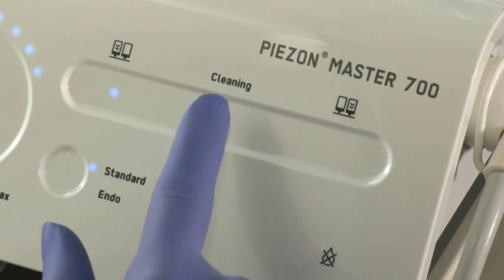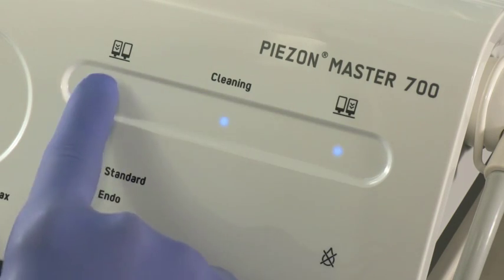On the interface, activate cleaning mode, then select the two bottles.